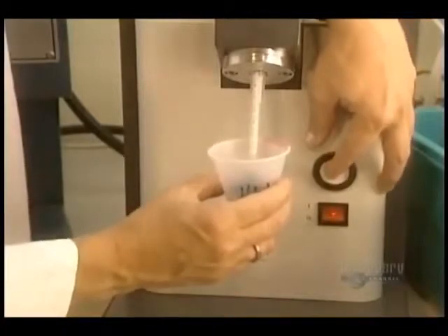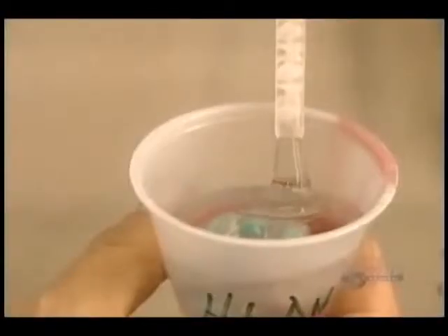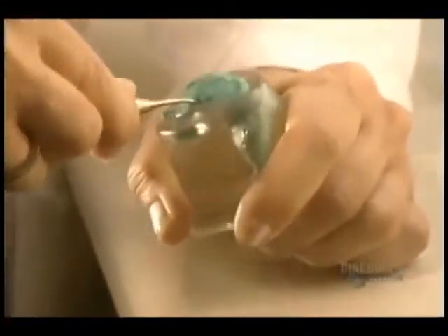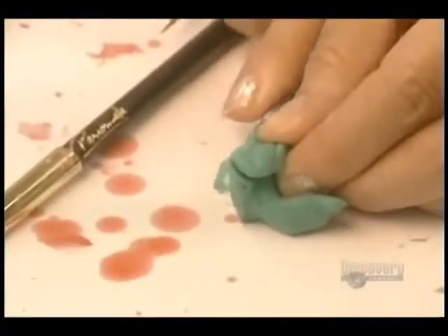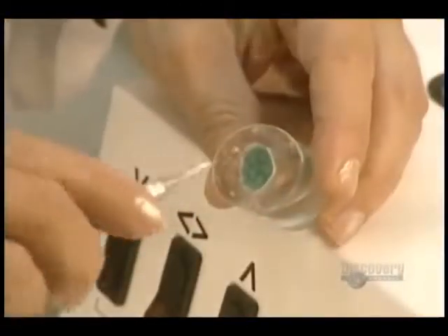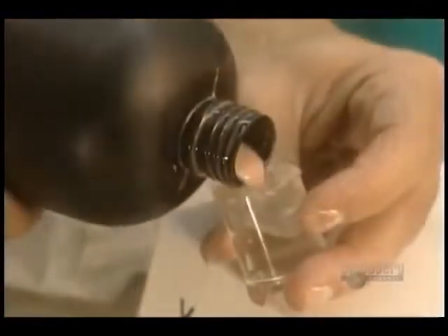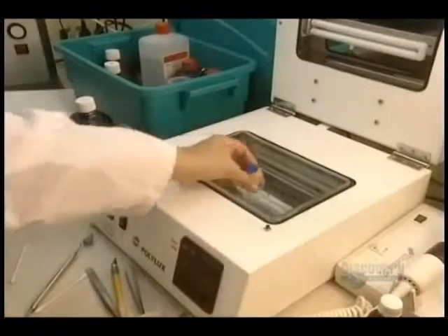The silicone container is filled and the silicone hardens in only 10 minutes. The hardened silicone block is removed and the excess of the imprint is cut away so that only the essential part is retained. The imprint must slip easily into the ear. It's now the molding stage for the hearing aid — acrylic is poured into the mold.